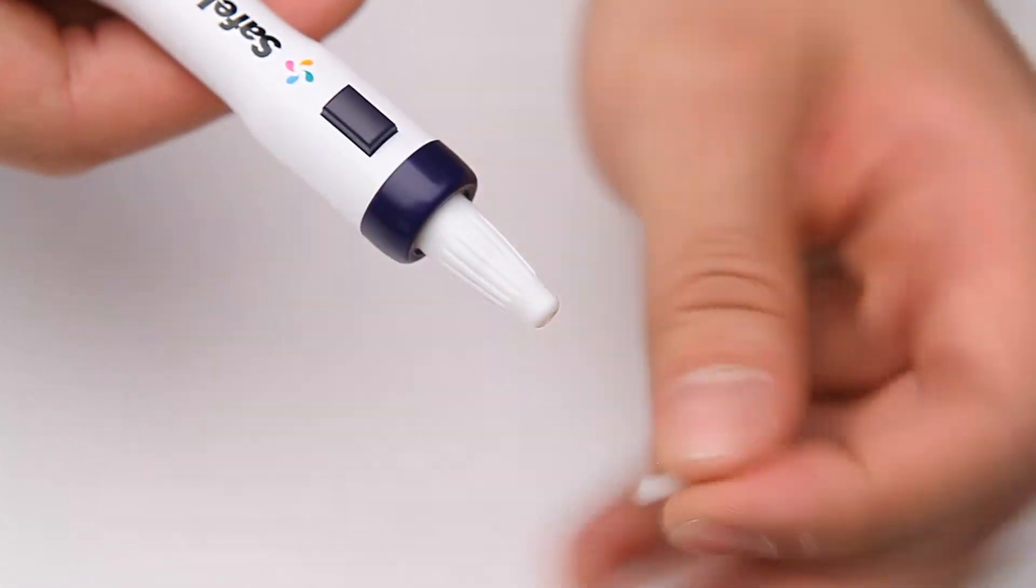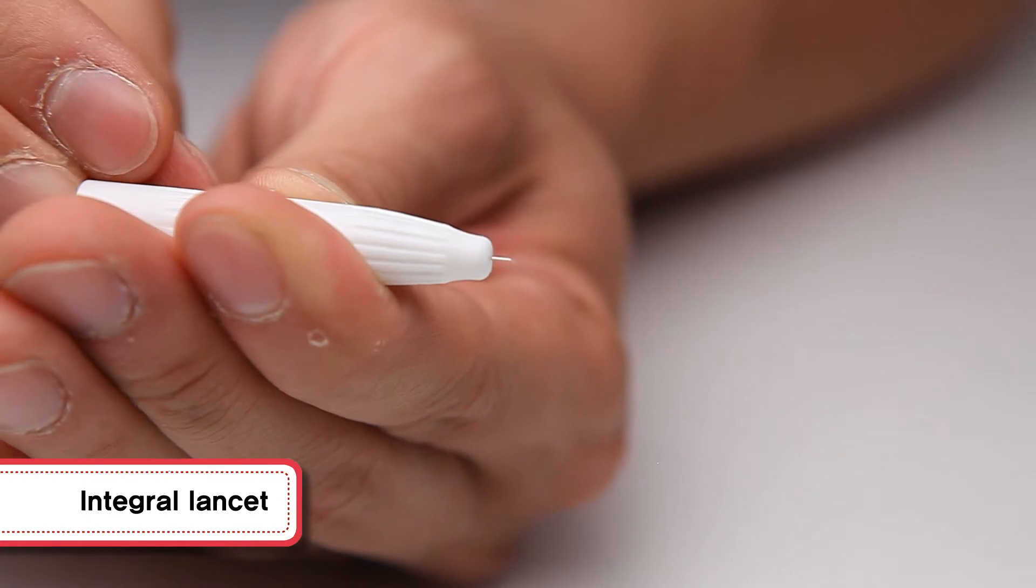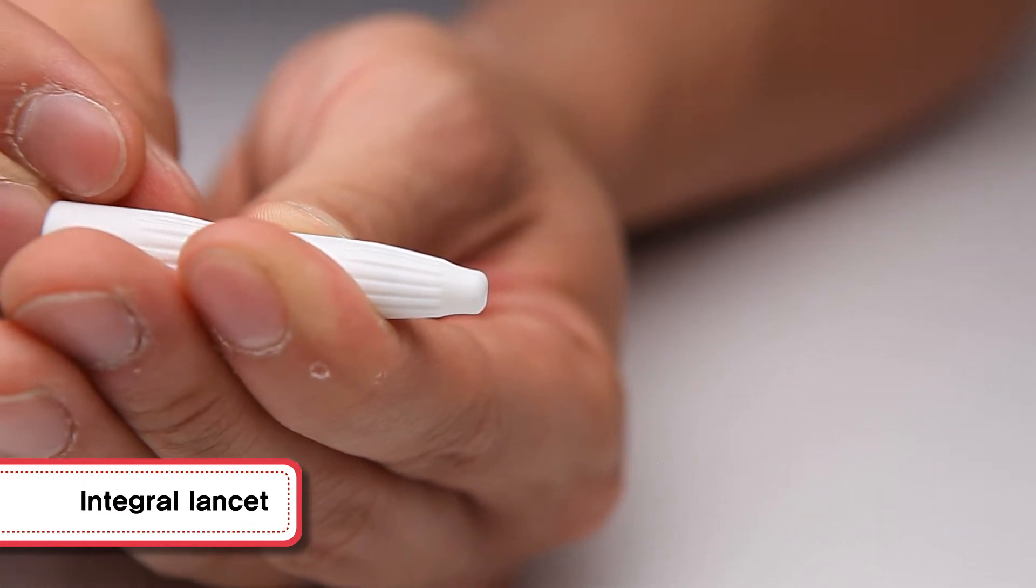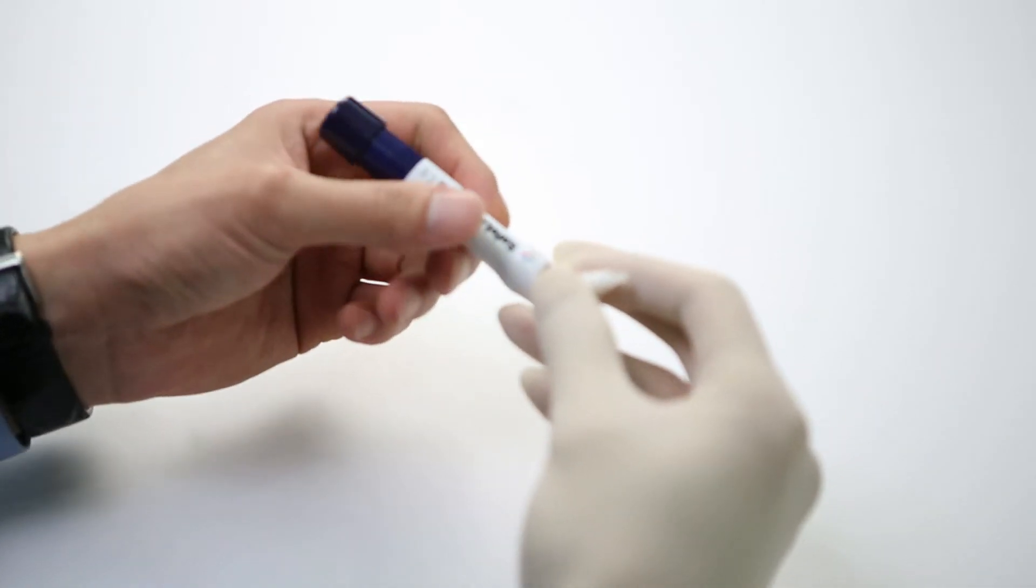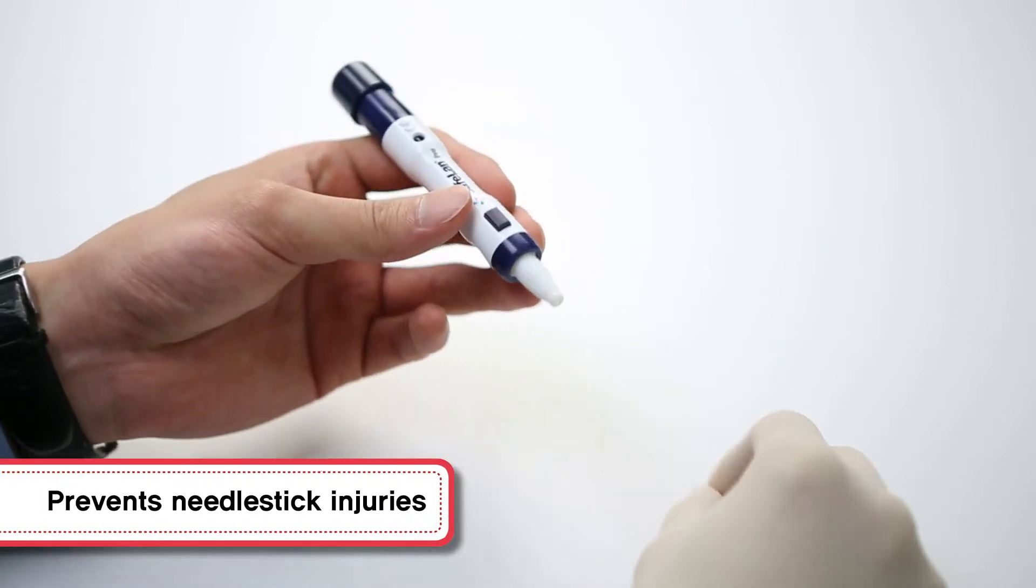It uses a lancet that is designed to integrate the needle stick and protective cap of the blood collecting device. So the needle never sticks out, except when being used, preventing needle stick injuries caused by careless use.